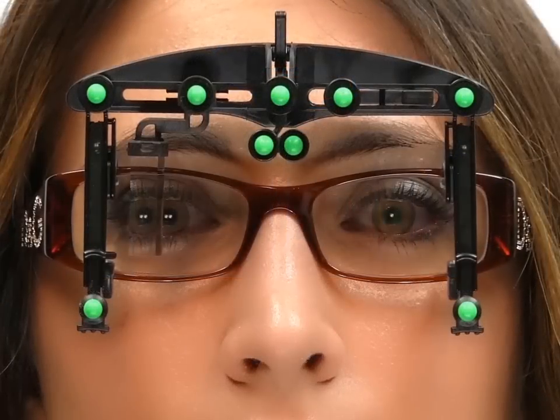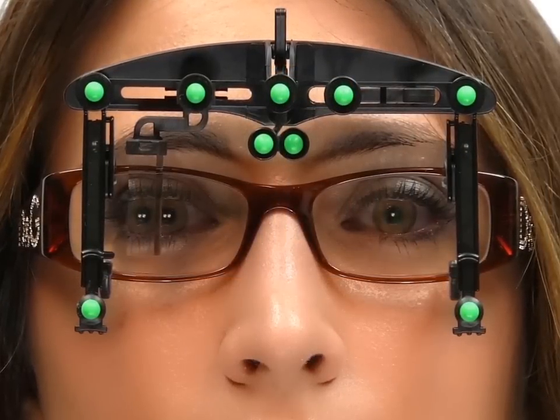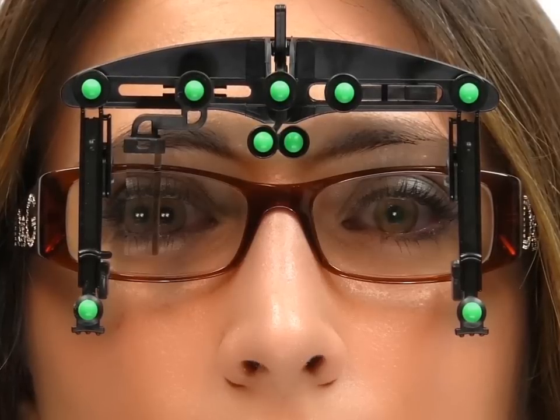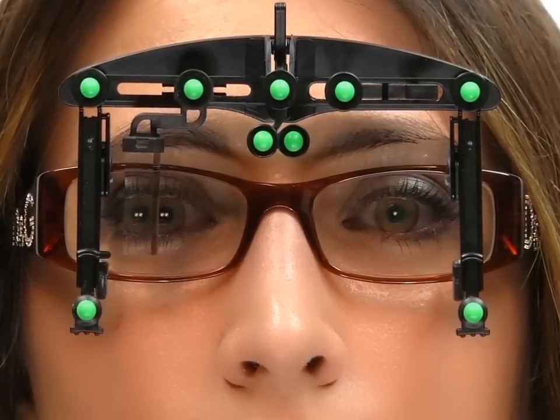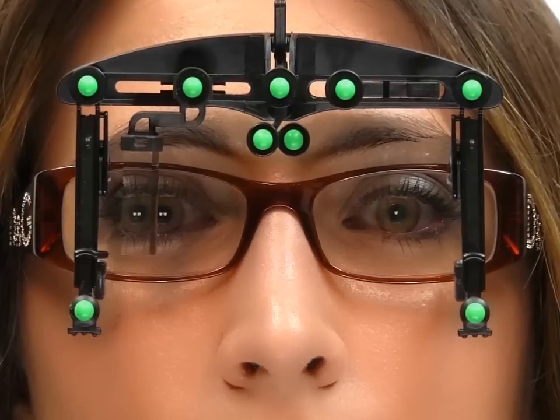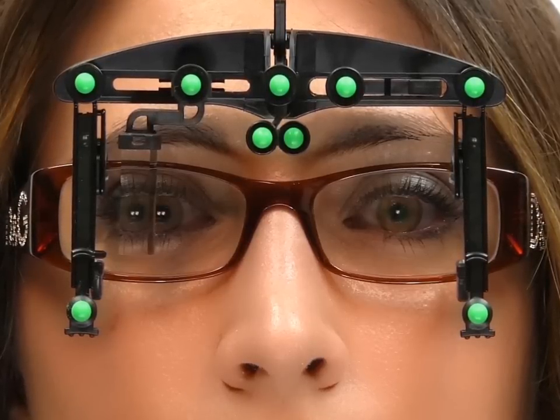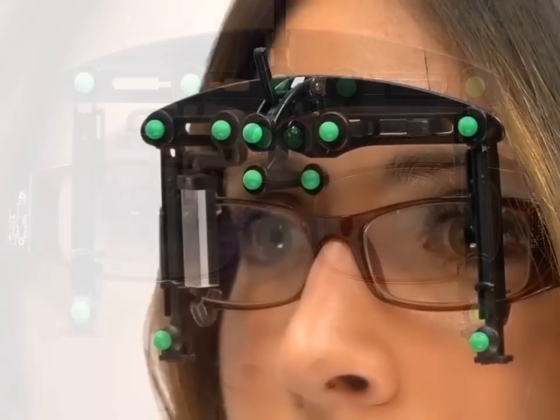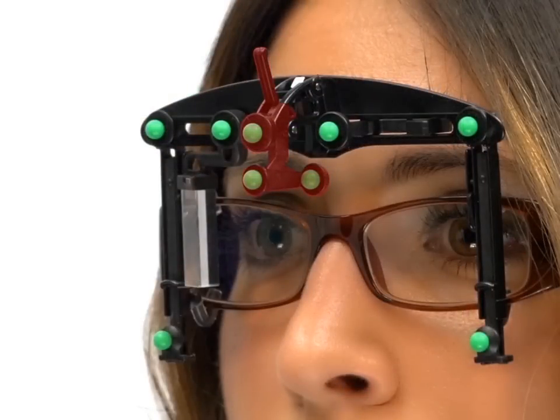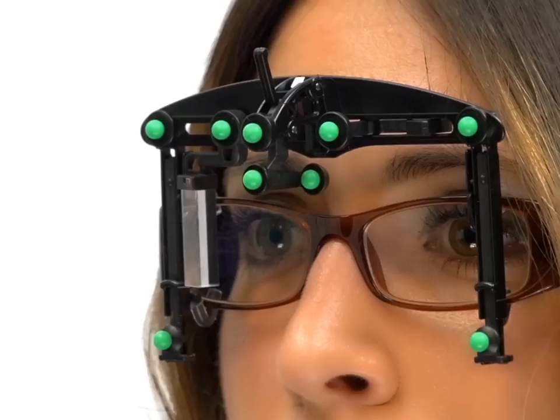The EY Stick is the device used to capture all the advanced optical eyewear measurements using one single frontal image. The EY Stick captures personalized frame fit measurements, taking into account how the frame sits on a person's face.